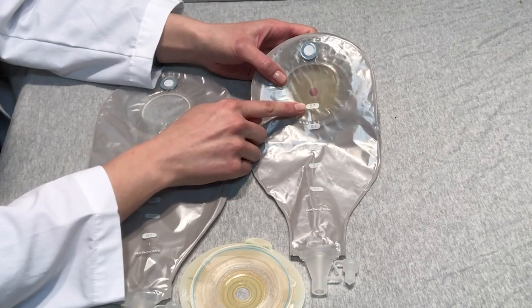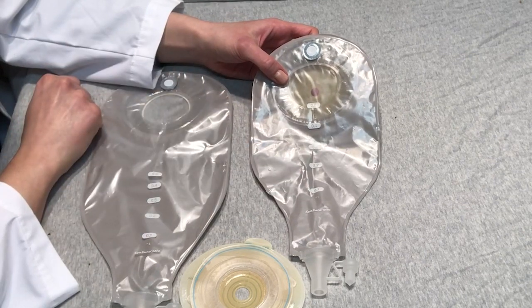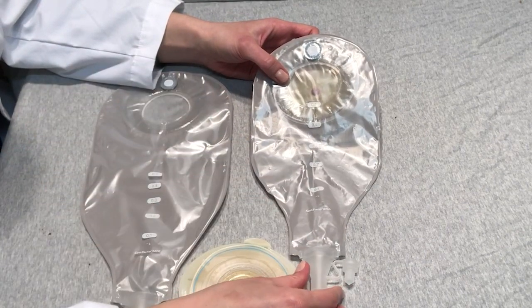We also have a measuring guide here. This is a visual cue for patients so that they can monitor their output, especially when they're having a high output out of their ileostomy.